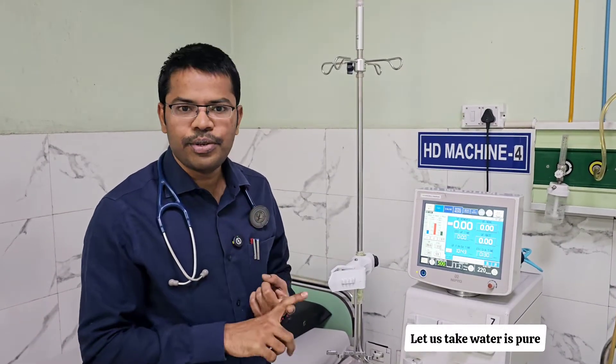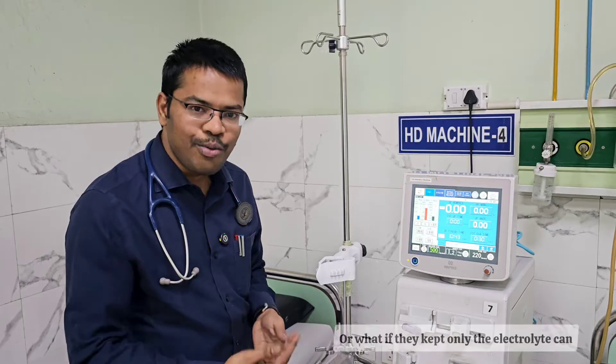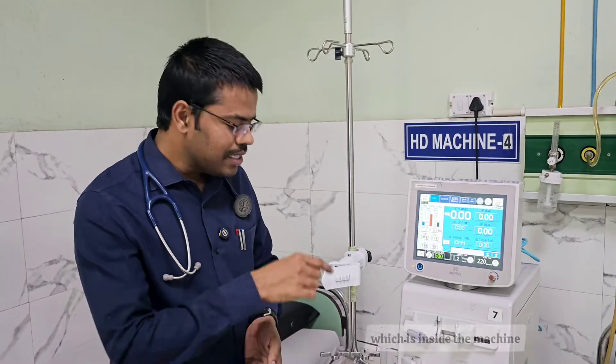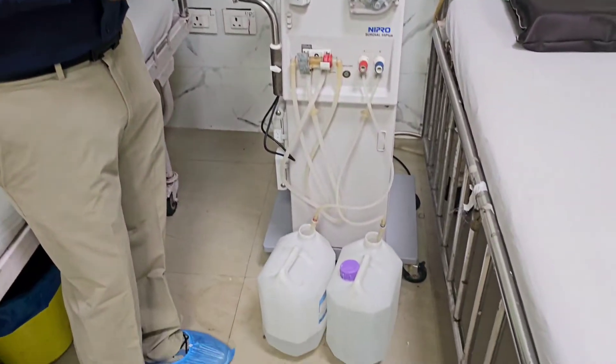Water is ideally pure, sodium is in the Part A can, and sodium bicarbonate is in the bicarbonate can. But problems can arise: what if the water is not pure, or a new staff member has interchanged the cans, or placed only the electrolyte can without the bicarbonate can? What if the proportionating system inside the machine is not working properly?